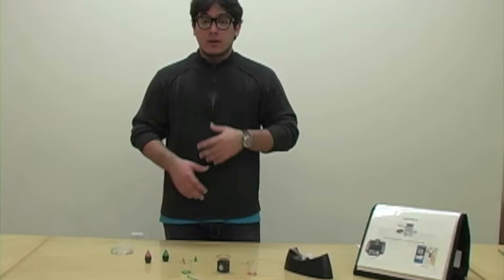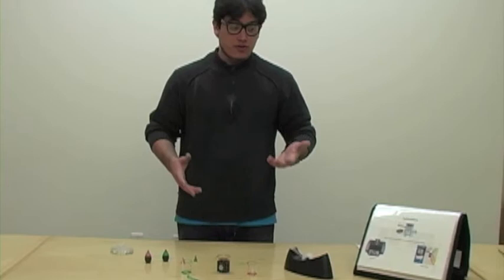You need a really small sample, just like the one I have here, less than a drop. And with a really small sample of blood, you can actually see the results in a glucose meter. That's a microfluidic device.